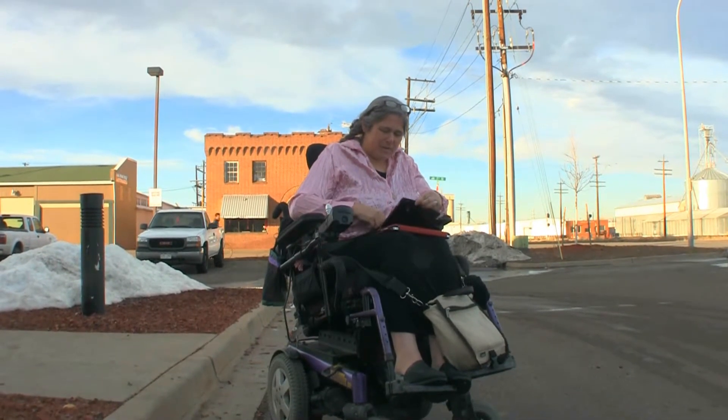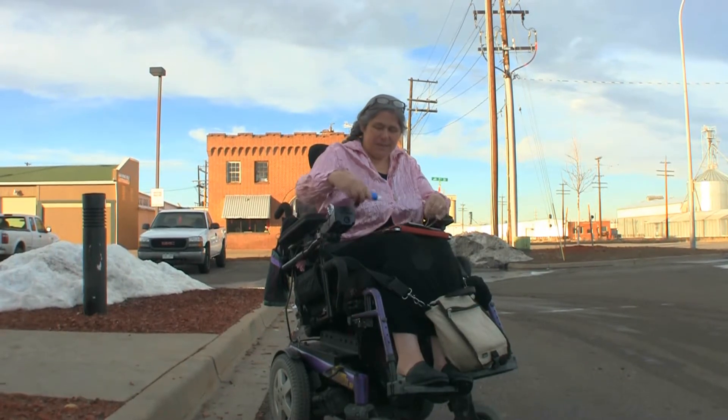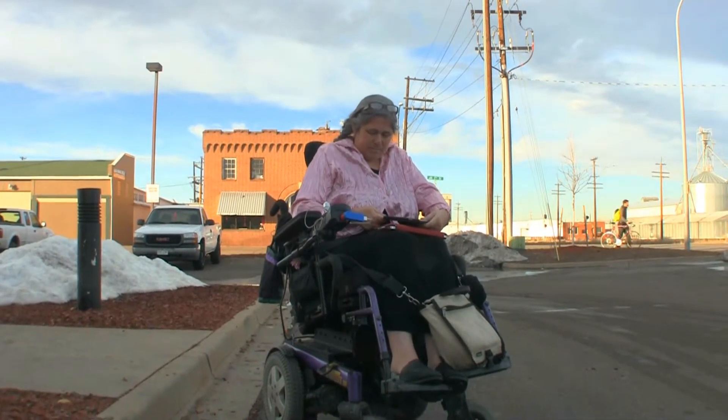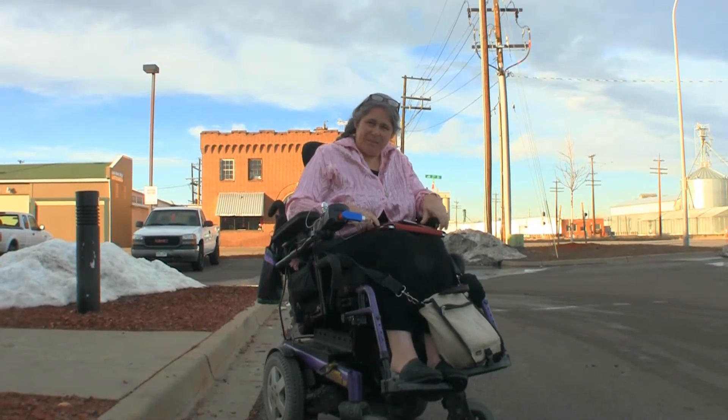It's Saturday. I've been doing a training most of the day and my iPhone is down to 38 percent, which is not going to get me through the rest of the day. So I plug it in here, stick it in here, and now it's charging. Simple as that.